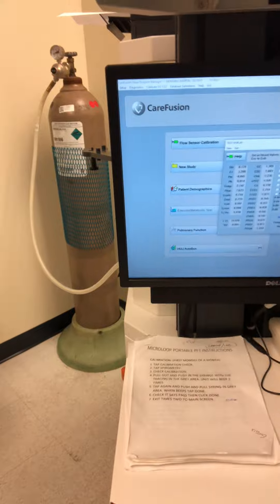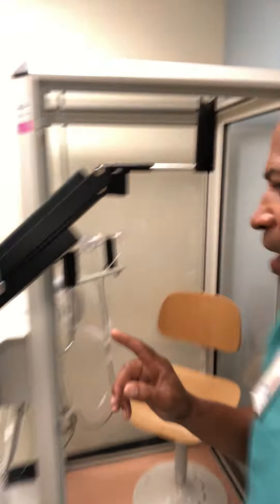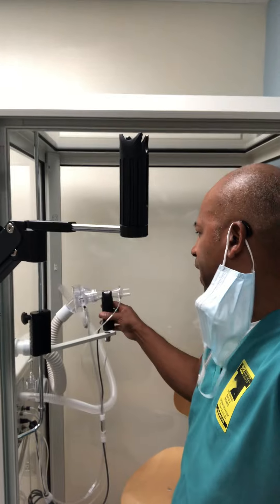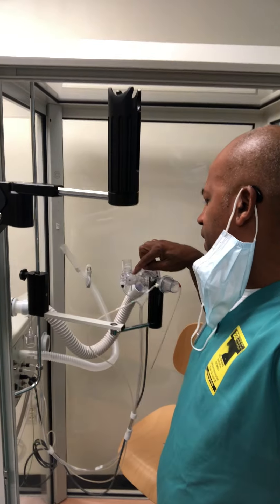All the voltages here — you want to make sure that all these meet specifications, because that's also very important as you're going through the service manual. The primary things that you're going to find quite a bit of problems or challenges with is here in the breathing system, and these are very important to be inspected.